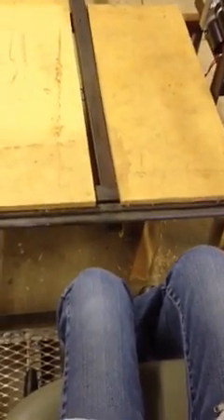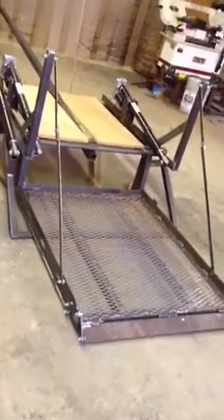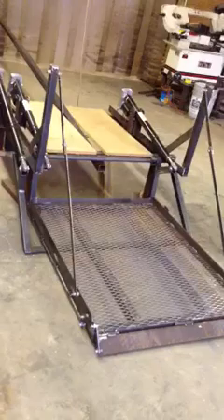We come up level to the floor — all you've got to do is just wheel over in there. Now this particular unit is sized for someone that wants to use a scooter, like a Bruno scooter, and pull straight across and turn their seat to operate the cart. In order to actually have room to put a wheelchair on and turn, the whole mechanism would have to be about a foot wider. Of course, we can make it up to six foot or eight foot, whatever the customer desires as far as the width, depending on the application.